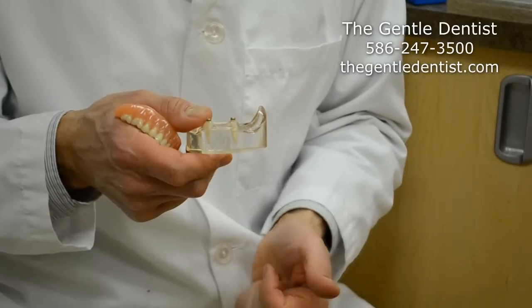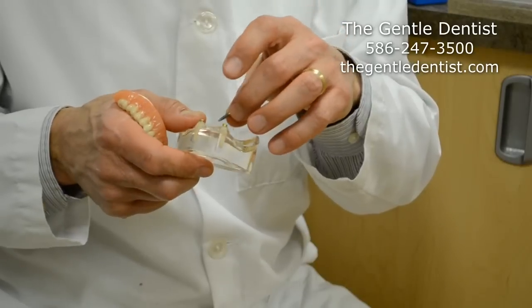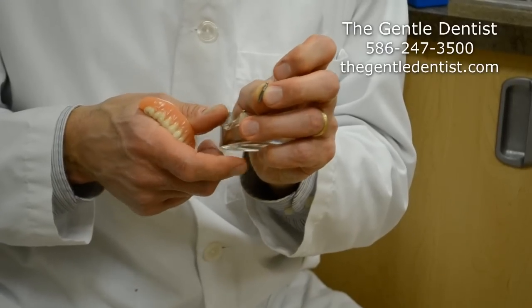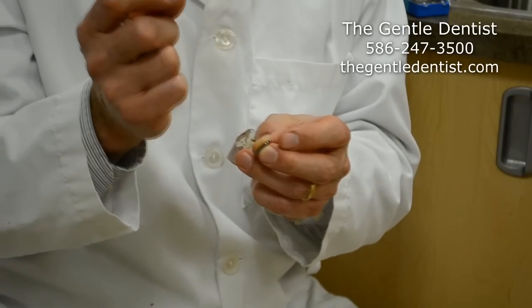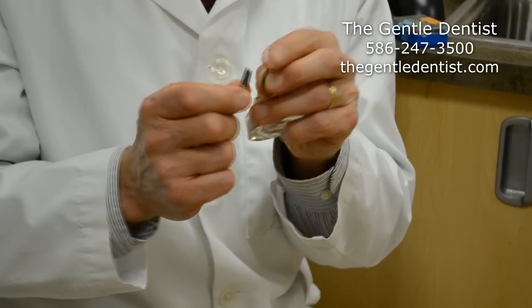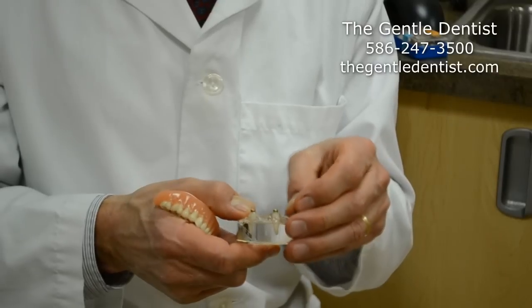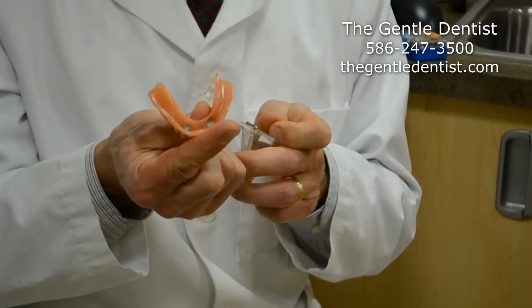For people who have had denture loss for quite some time and their bone is rather narrow, we can use what's called a mini implant. A mini implant is less than three millimeters in diameter, which is pretty small, compared to a full-size implant which is over three millimeters — this one is five millimeters in diameter. We'll place these mini implants inside the jawbone, four of them usually in the lower front area, and then use a similar device to snap the lower denture in place.